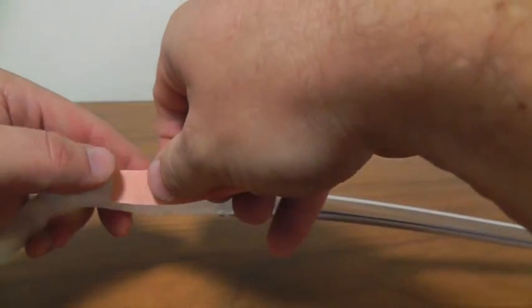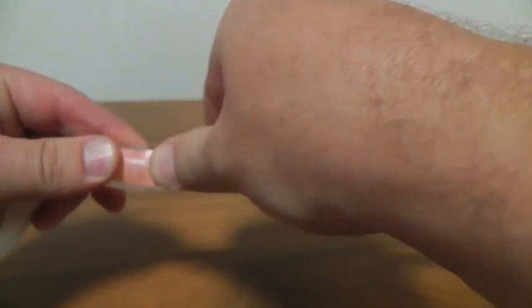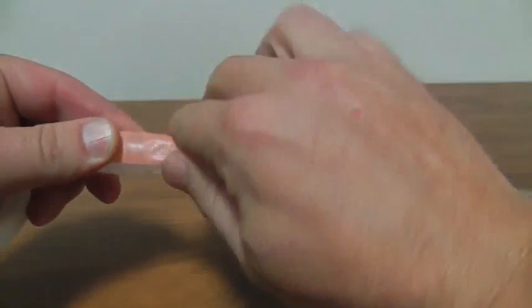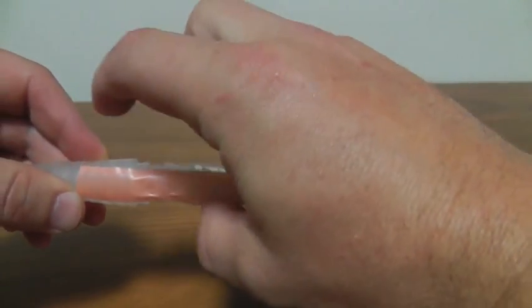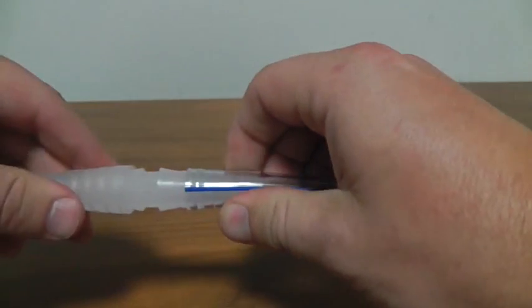What I do, first of all, I put a bridge across between the two pieces, the tube, so it's connected to the tube, the connector and the other tubing, roll it over.